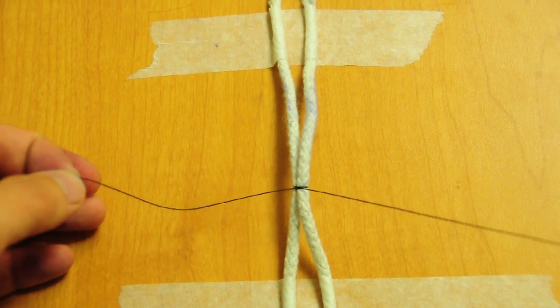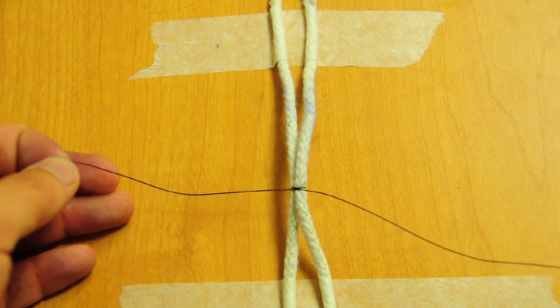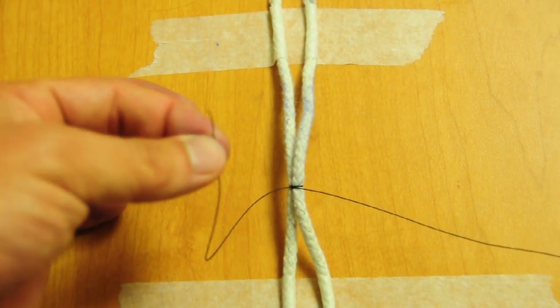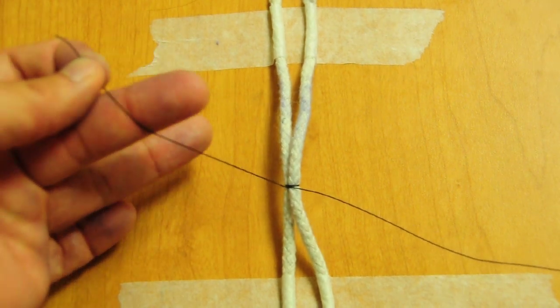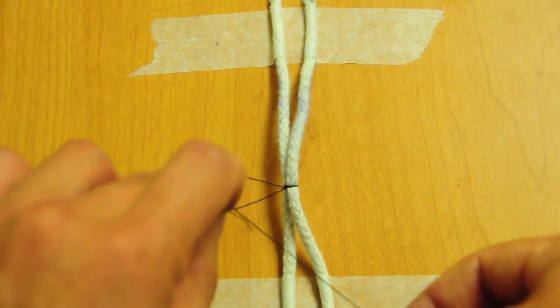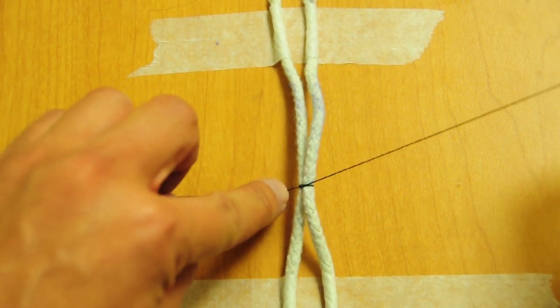So now that I've done a granny knot with two index finger one-handed ties, I'm going to do the middle finger one-handed tie. So when you're doing middle finger one-handed ties, remember sutures between your index finger and thumb. Make the loop over your middle finger, like so. And we come out. Always push it down.